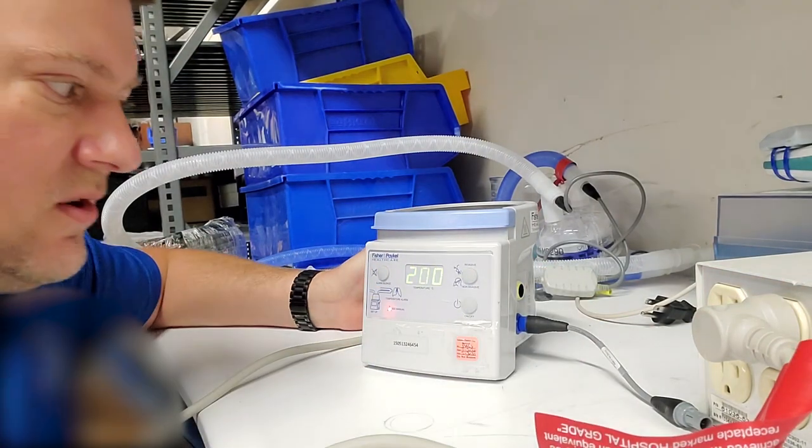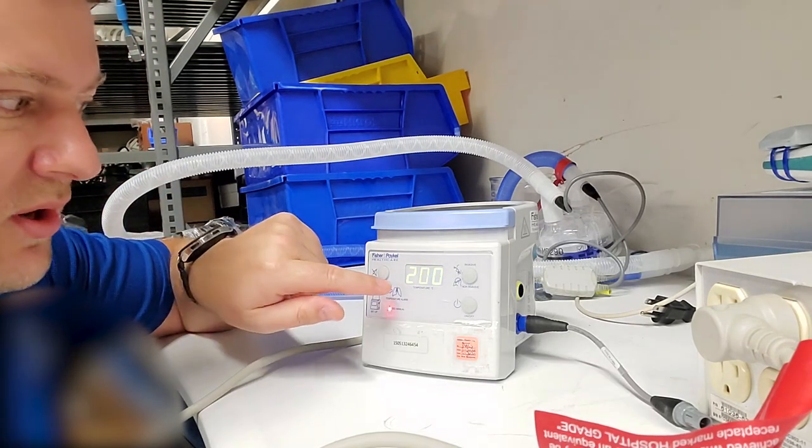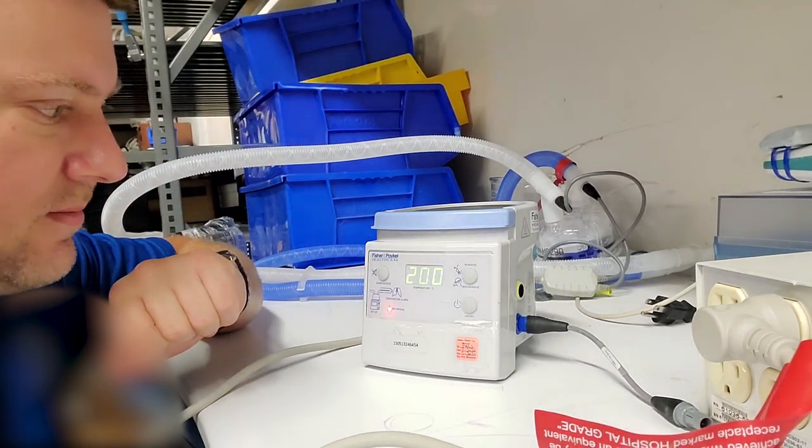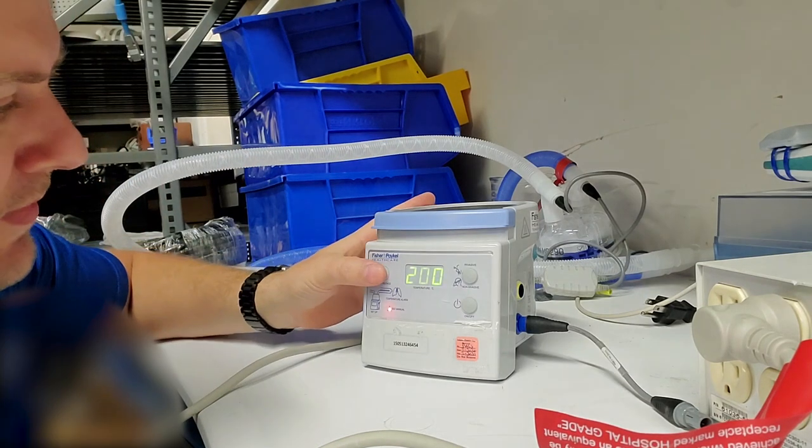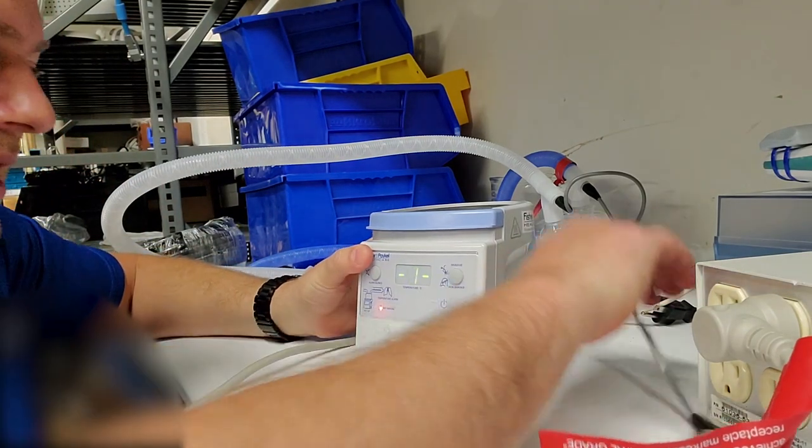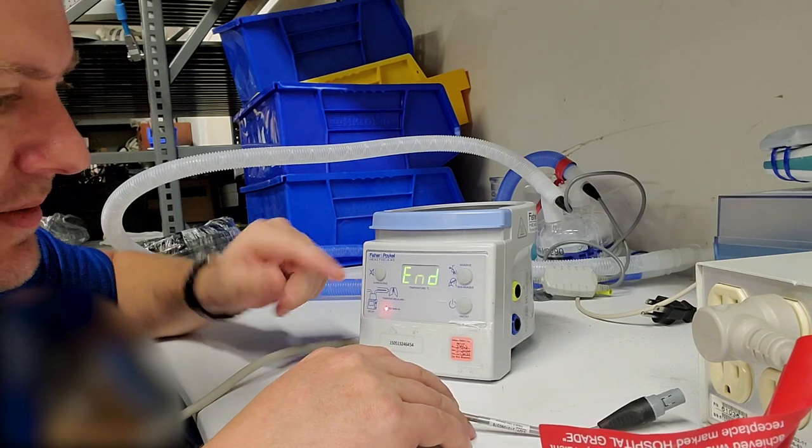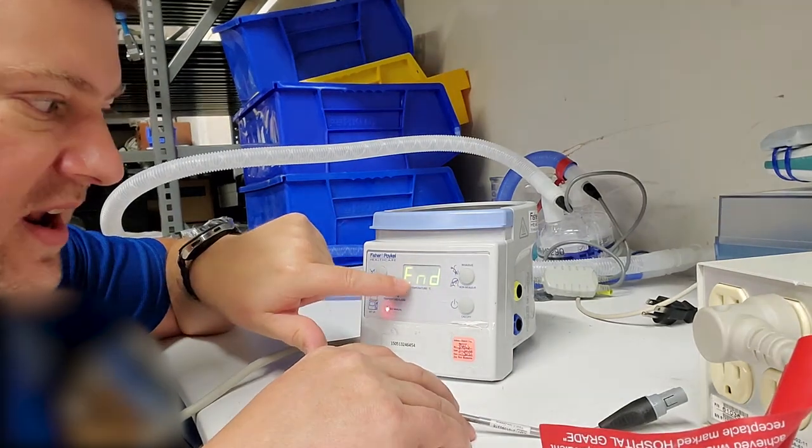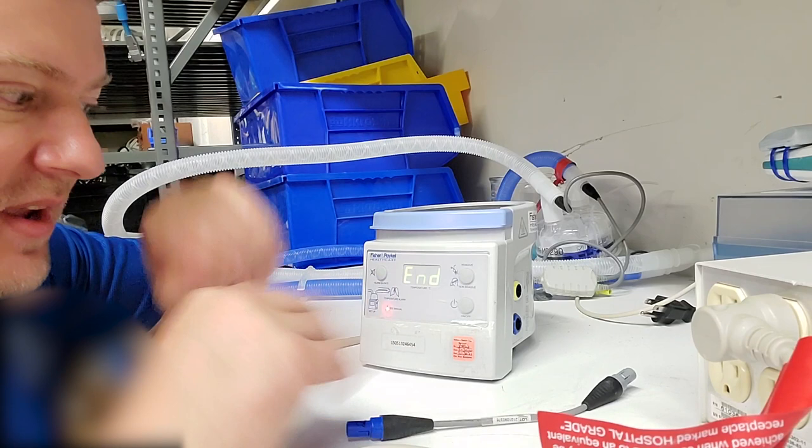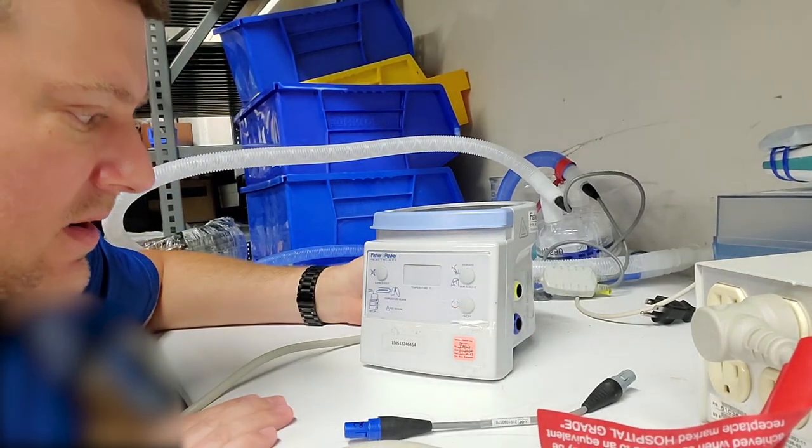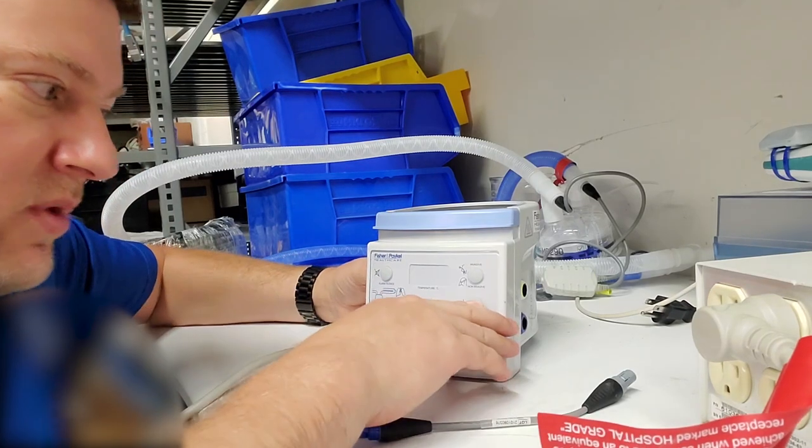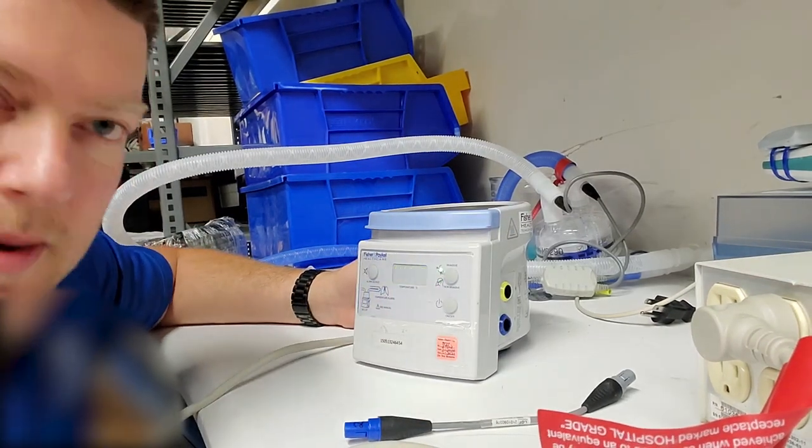We activate it in two, and what we're looking for is 200. So I'm going to let it sit there and stabilize, and then we press the mute button. That takes us back out and it'll sit on 'end' for a little bit, and then it will kick out of service mode. There we go, and now I reboot it and it goes back into normal operations.